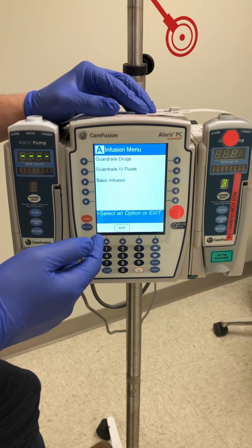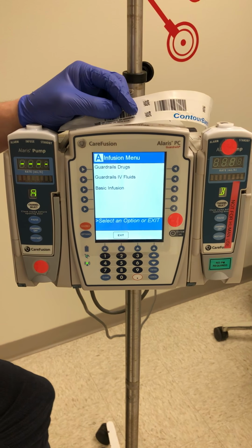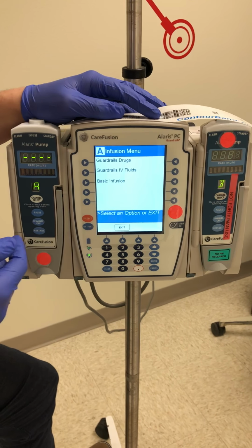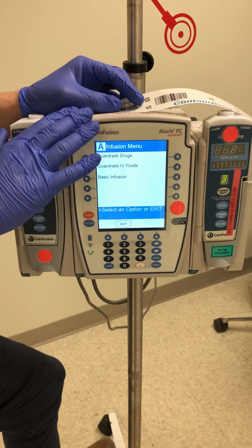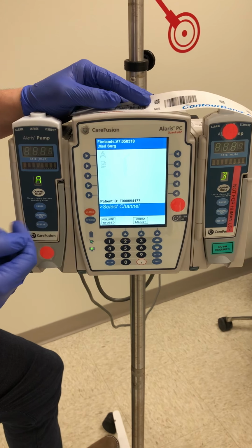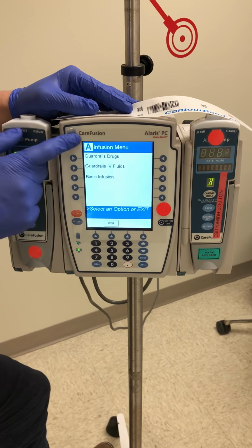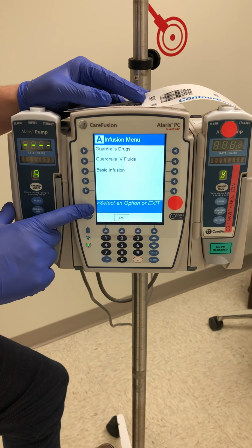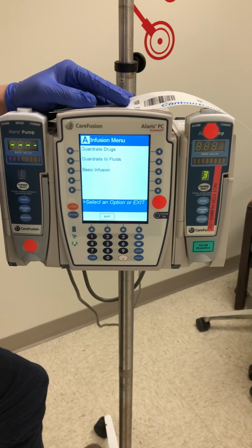The term guardrail is pre-programmed into the system here to make sure we are providing the patient with the correct medication administration rate. So every medication that pharmacy has programmed in here has pre-programmed rates to make sure we aren't going at a non-prescribed rate. You don't ever want to use basic infusion. If you aren't able to find the medication that you're infusing on the selection menu here, you want to contact pharmacy because we want to make sure those guardrail limits are used properly.